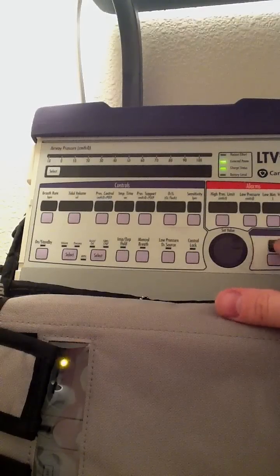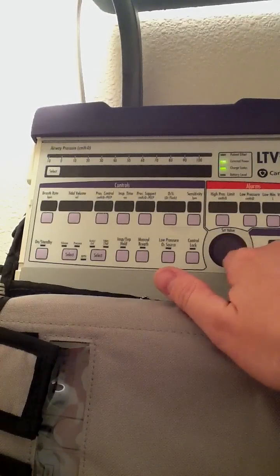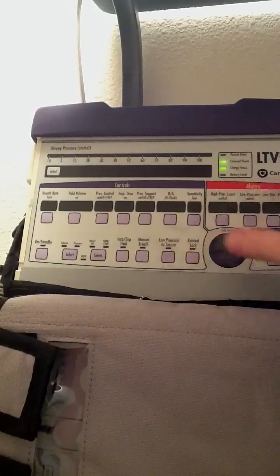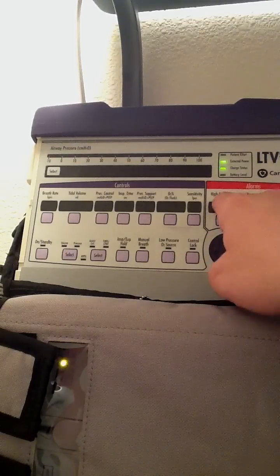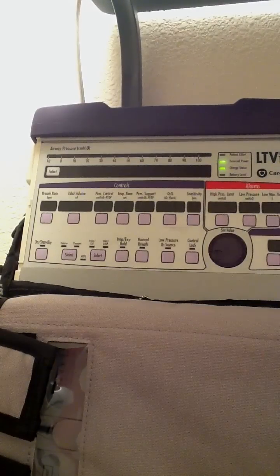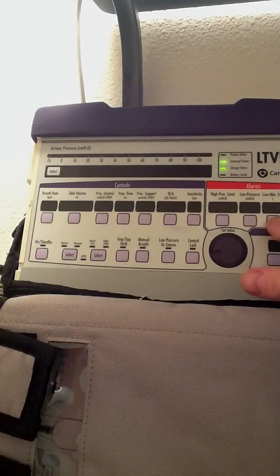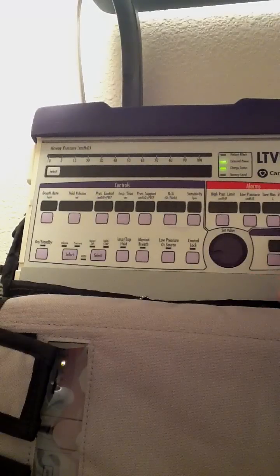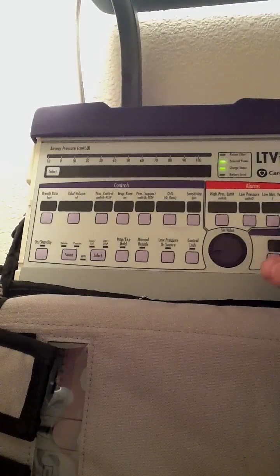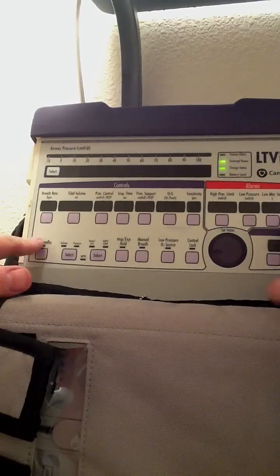This over here is PEEP. This is a little selector dial — this is what we use to go up and down on our settings, with a little indent where you can put your finger or thumb. These are all of my alarm settings: my high pressure limit alarm, my low pressure limit alarm, and then my low minute ventilation alarm. Just to the right is the silence/alarm reset button.